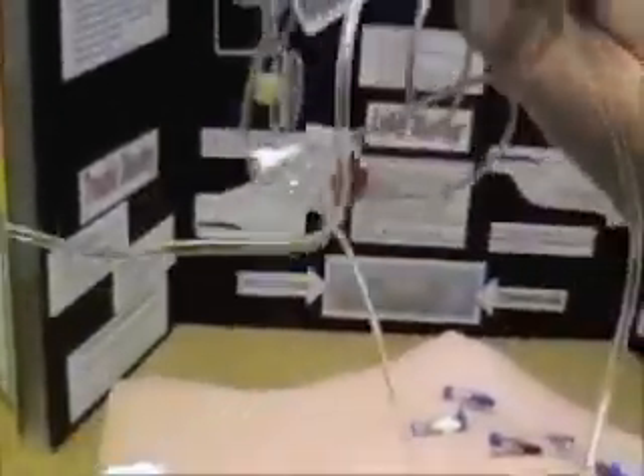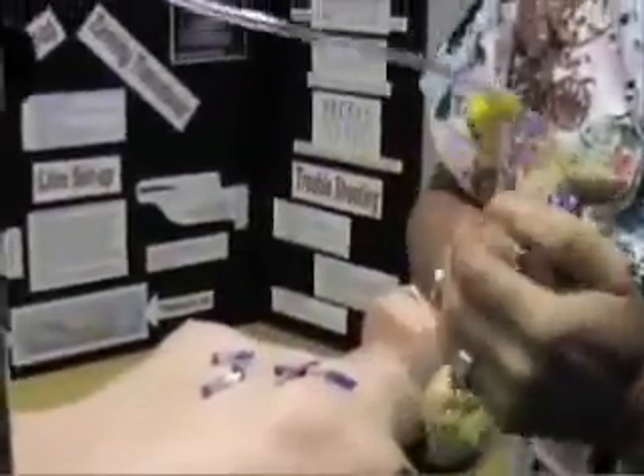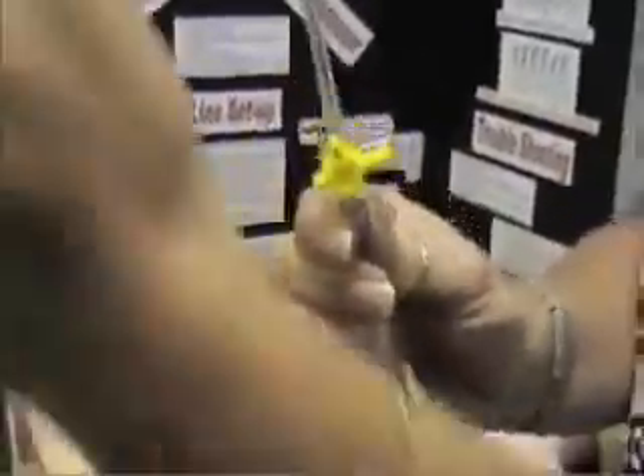Once you're primed all the way through, you can roll your clamp down so that you're not going to leak saline, and pump your pressure bag up. The stopcock is off to the open port so that it gets air pumped up into the bag.